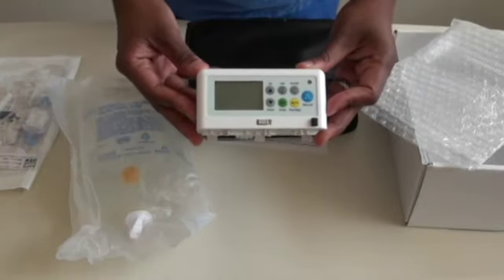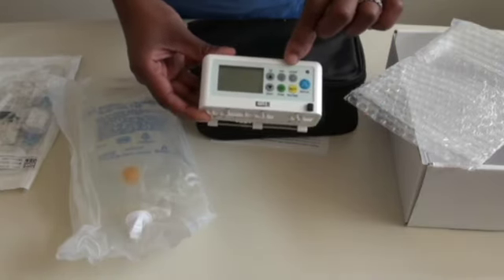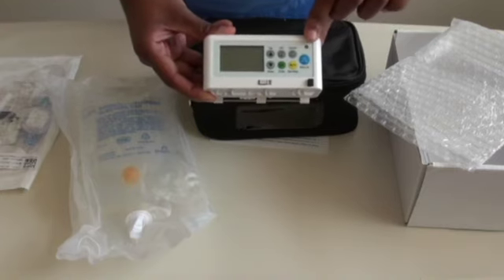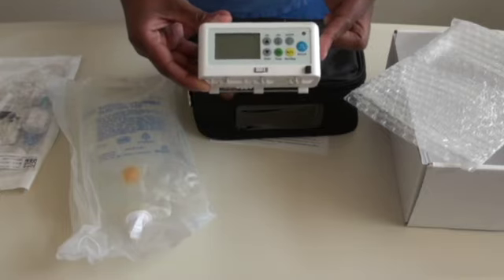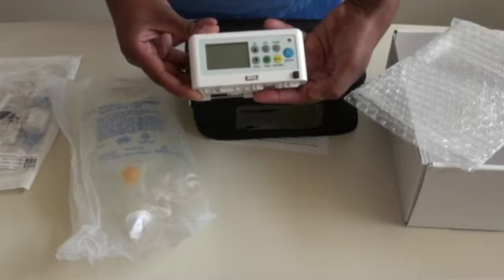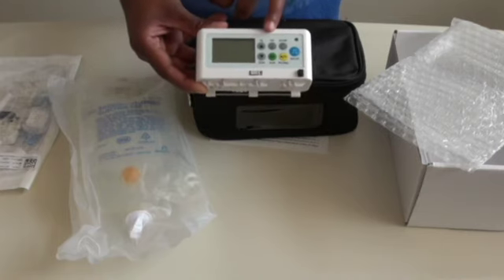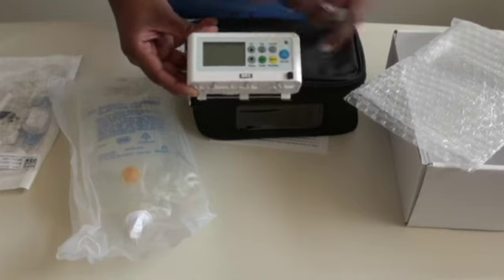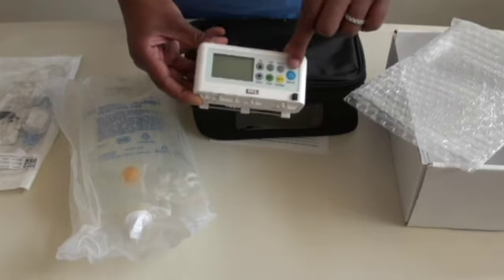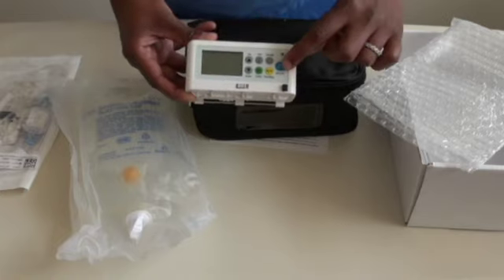The new model is light and small, with only a few buttons to be aware of. In the top left we have the LED, which flashes green when the pump is running — a battery-saving mechanism turns it off after 10 minutes. We have up and down buttons, an OK button to confirm program changes, an info button that also works as a back button, an on/off button, and a run/stop button which pauses the pump and silences alarms. The blue bolus button is the main button for the patient — if they want additional analgesia, they press that blue button.